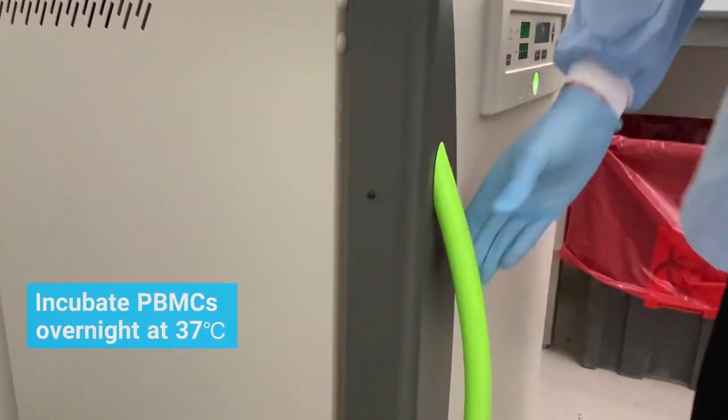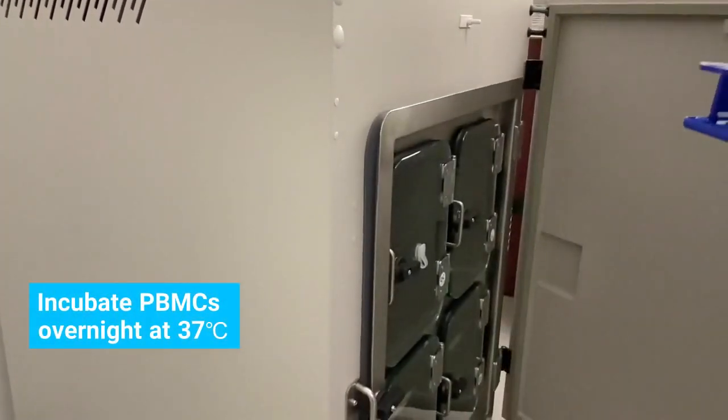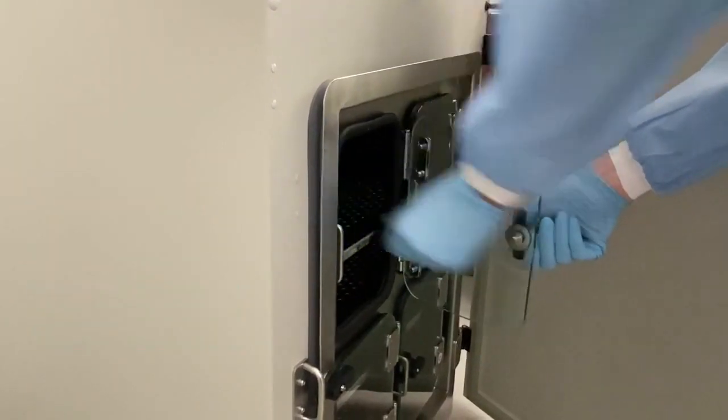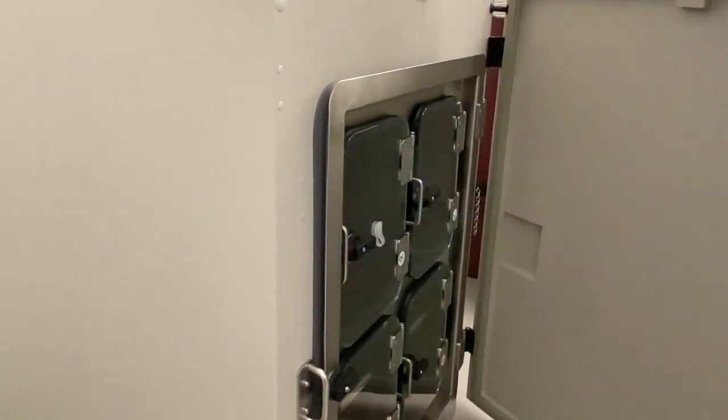We recommend incubating the PBMCs overnight in a CO2 incubator at 37 degrees Celsius before using the PBMCs in cell-based assays.